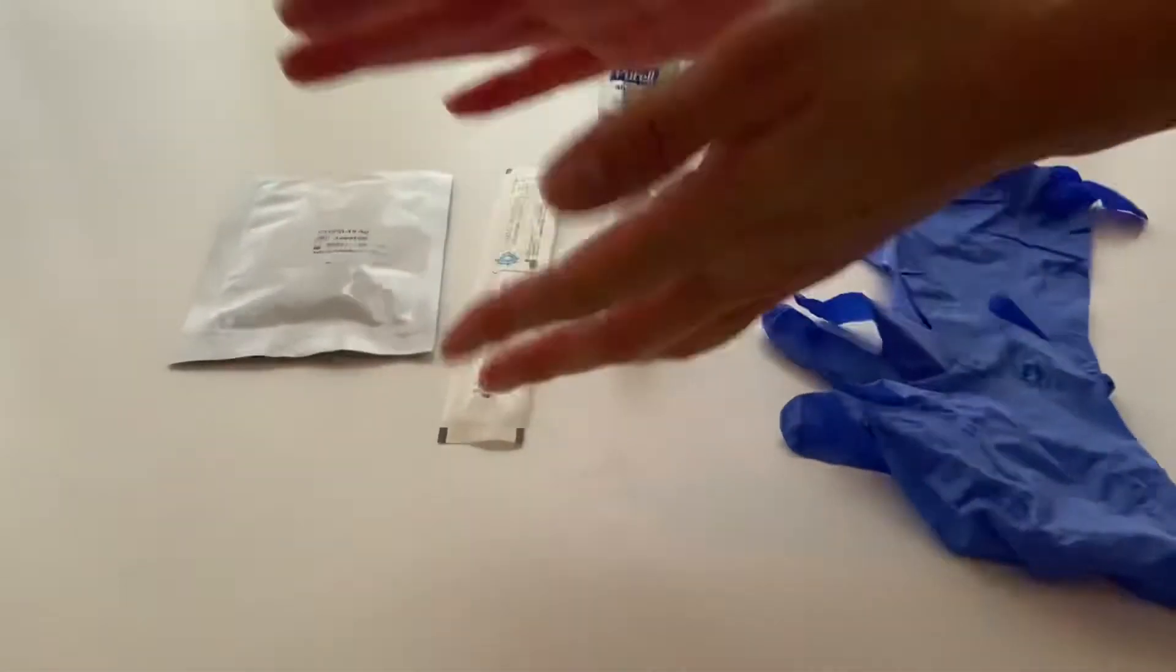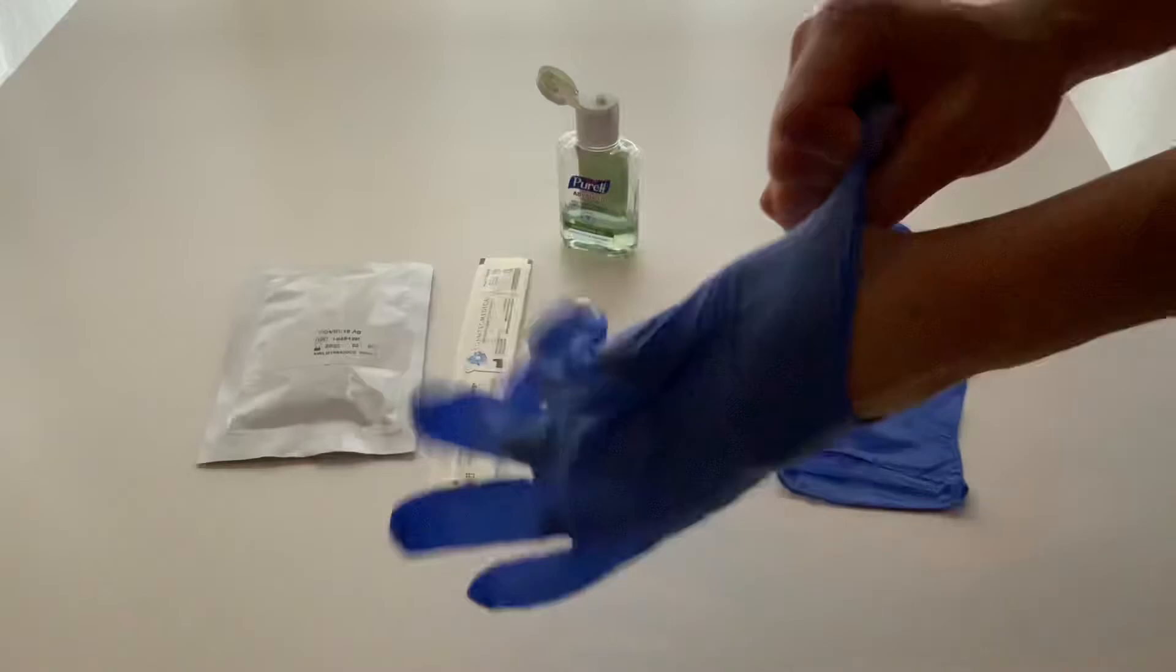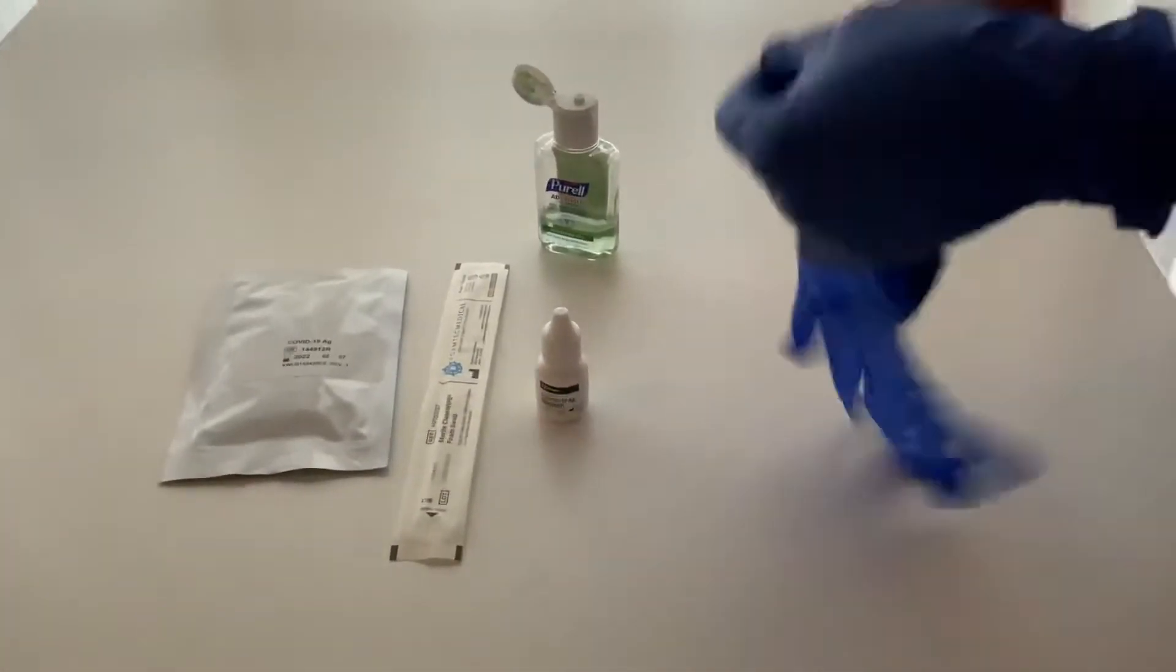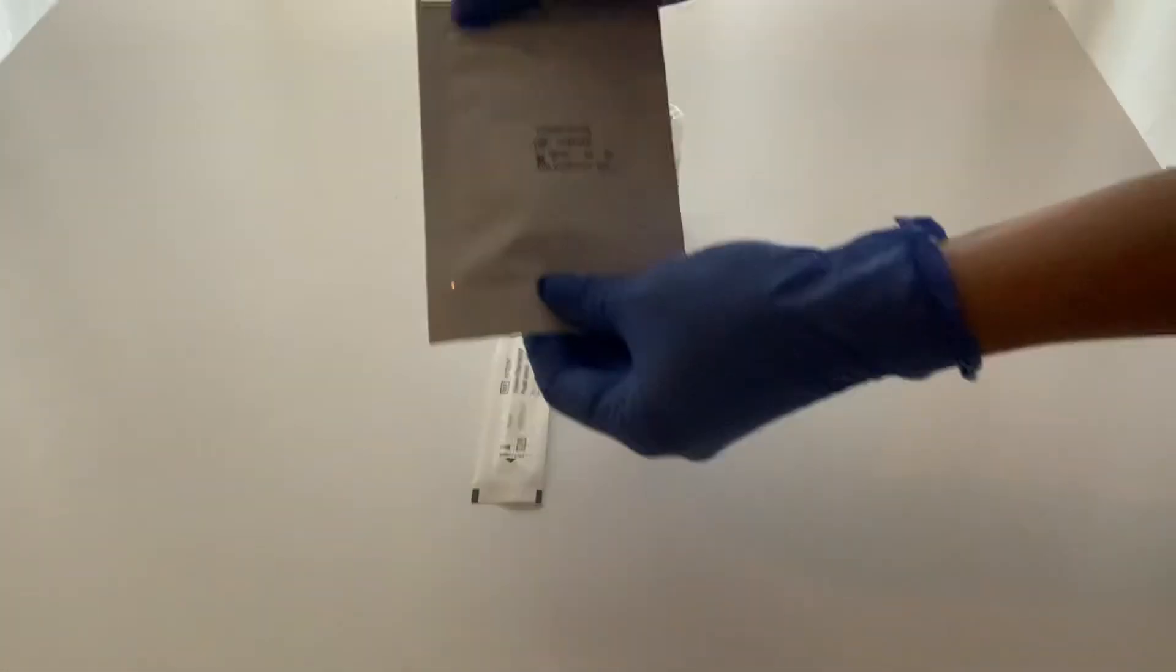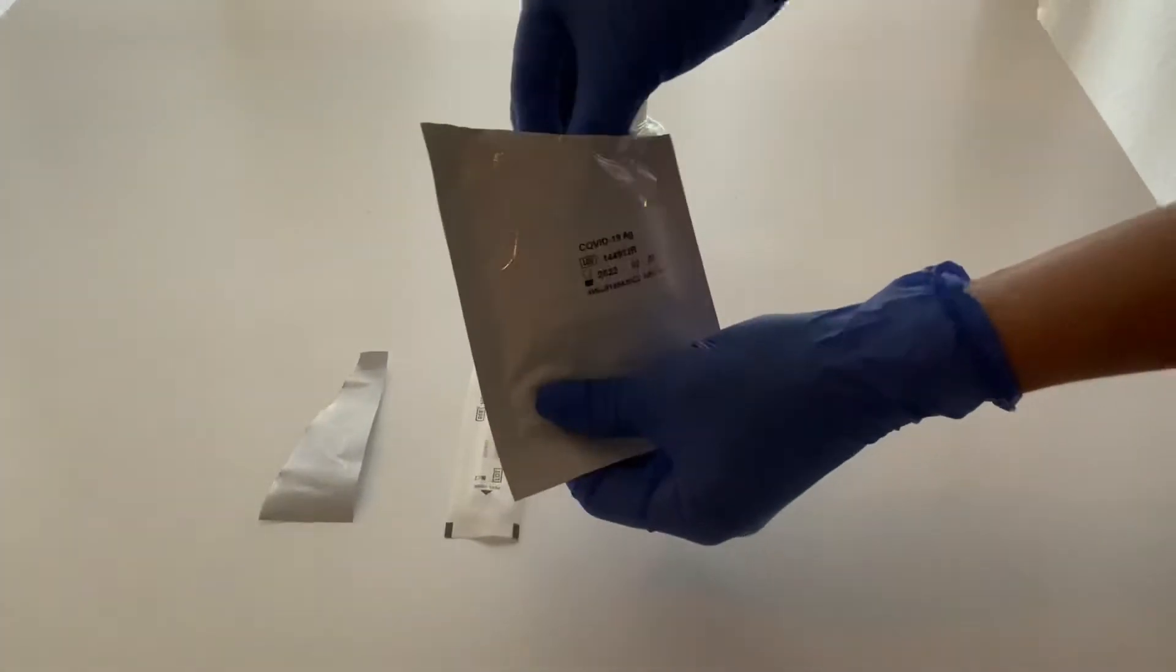Go ahead and hand sanitizer, wash your hands prior to putting the gloves on. Shove these babies on and then you're going to open your packet.